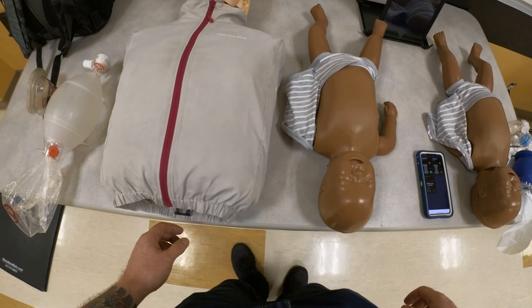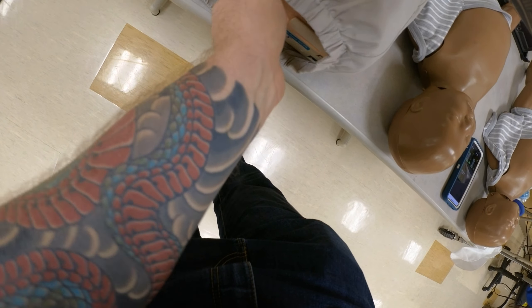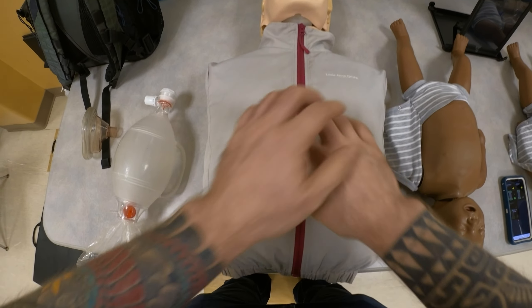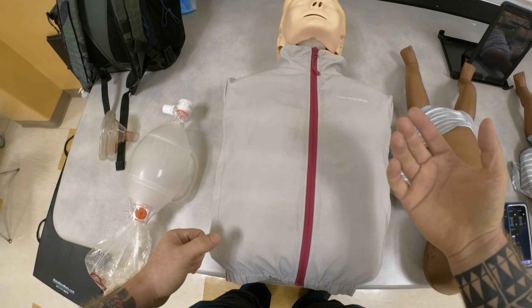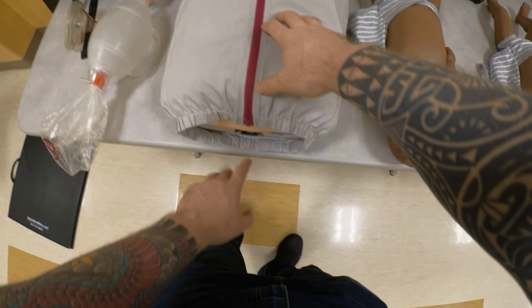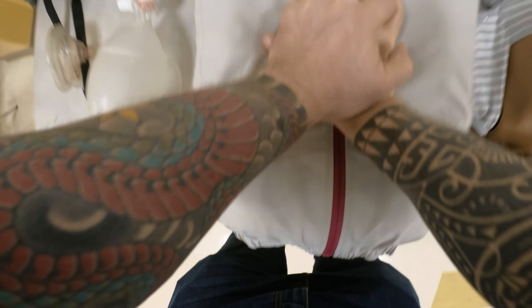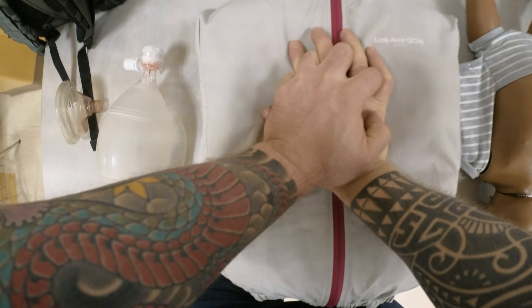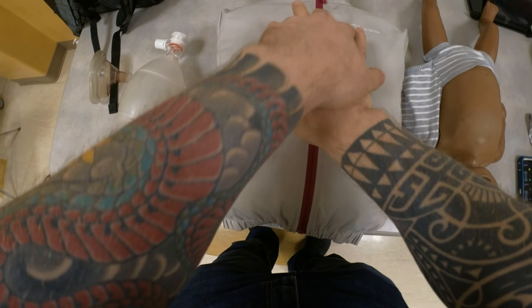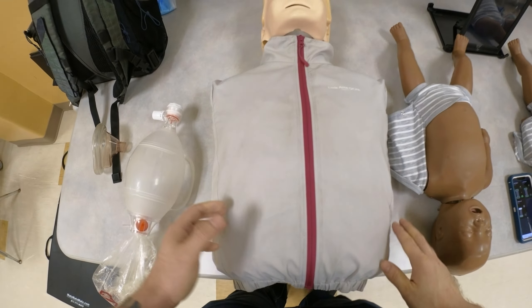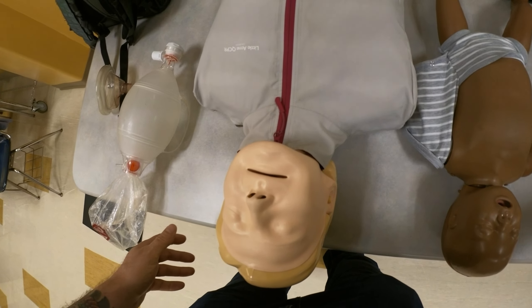For Little Anne, there's something else I want to show you. At the bottom there is a pull tab. When this pull tab is pressed inside, you'll hear a clicking sound — it provides feedback for students that they've achieved adequate depth. But if you pull it out, you no longer hear that click. So you can remove it and have them use audiovisual feedback only, or keep it engaged so they have that sound when practicing.